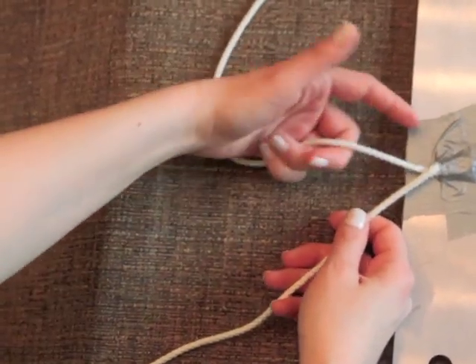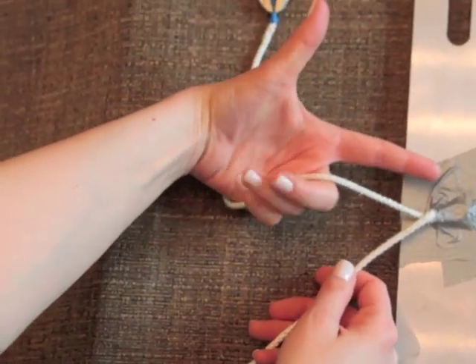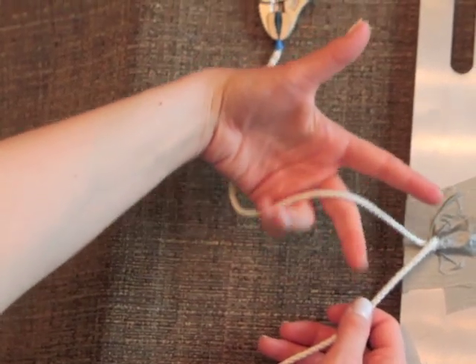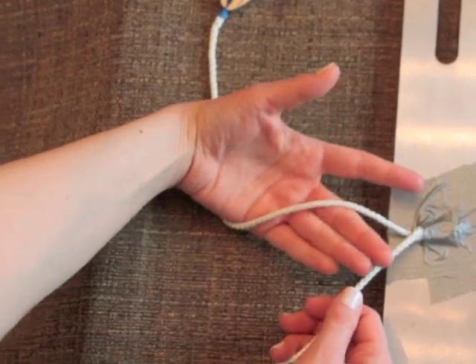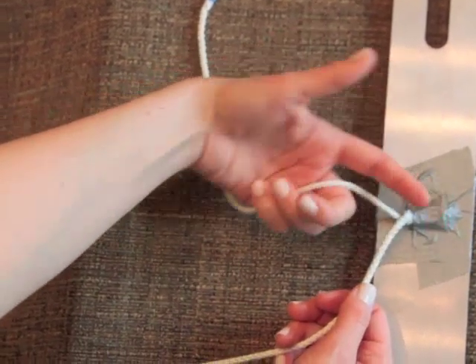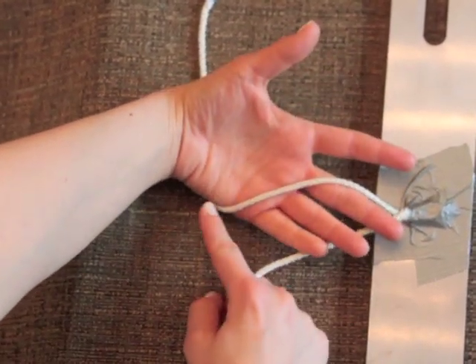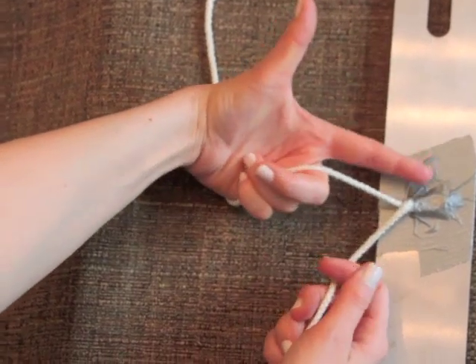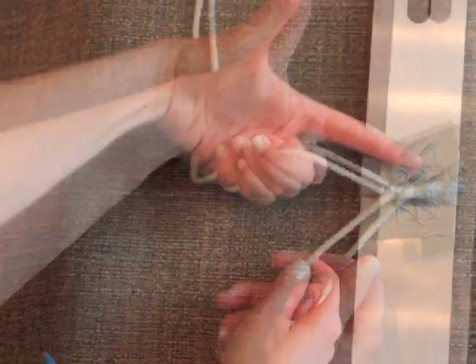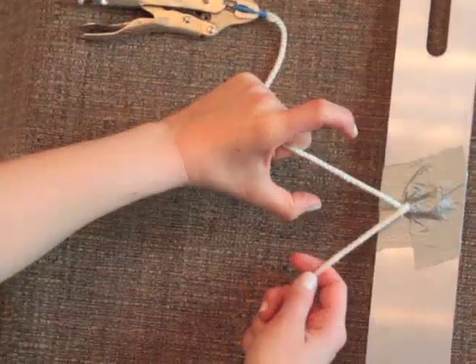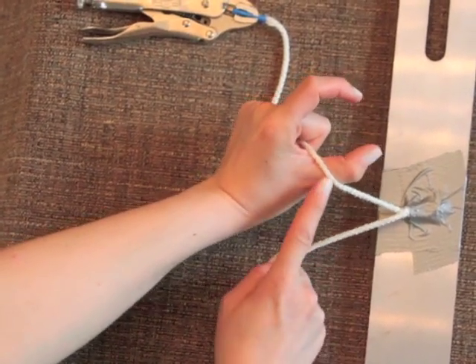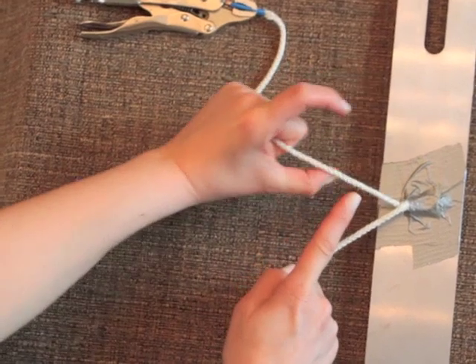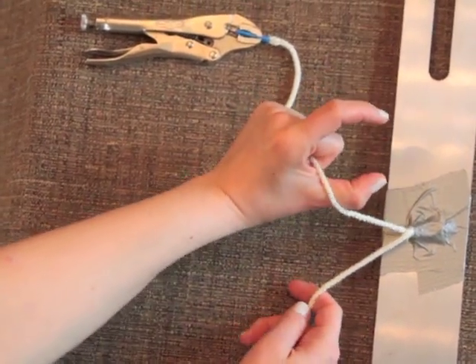Now you may wonder why the gun hand, and that's so that you make sure to start with your needle driver end in the right hand position. So it's these three fingers, it's going over across your palm, with your first finger and your thumb free. So it's gun hand C. And now cross it under so that it's at the base of your thumb, so you're not going to lose it. If it's at the tip, it could easily slide off. Base of your thumb.